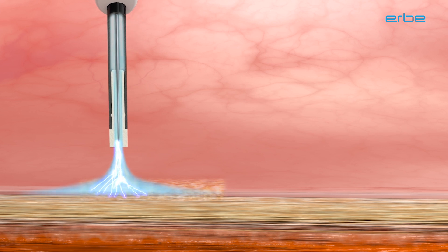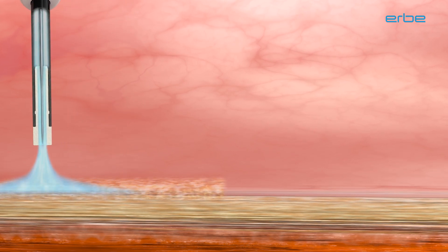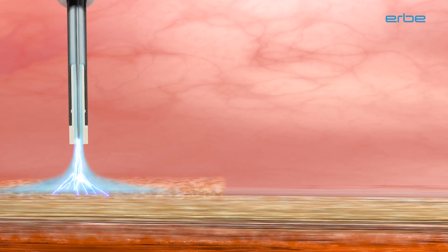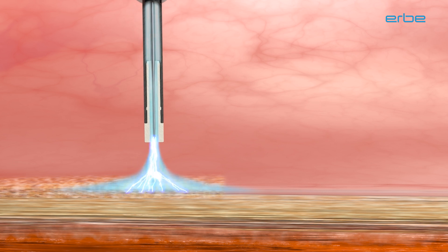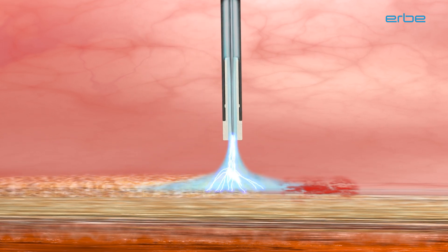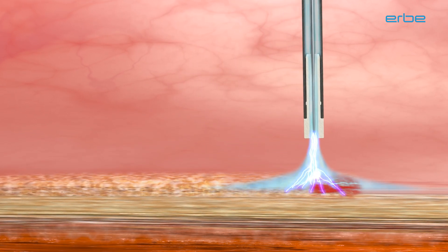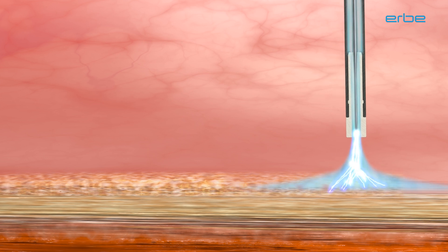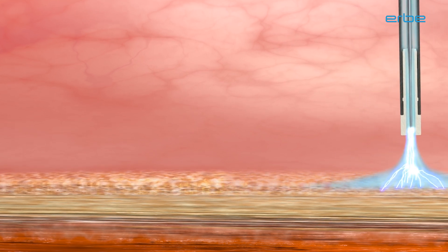Argon Plasma Coagulation, APC for short, is an electrosurgical monopolar procedure for superficial hemostasis, devitalization, and ablation using ionized argon gas.